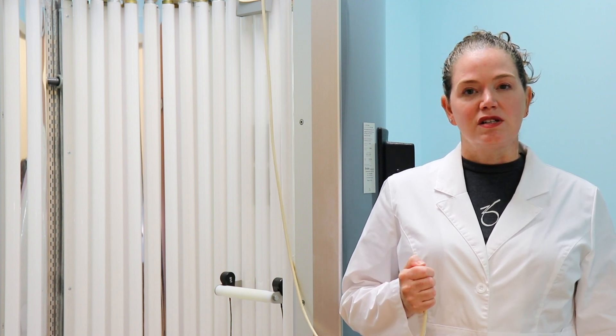And again, once you're in the booth, you undress, you've got your eyes covered, we do like you to cover your genitalia as well. We just let you get the booth started on your own. So just press down the button and then we let up, and hopefully, voila, it will come on. There we go.